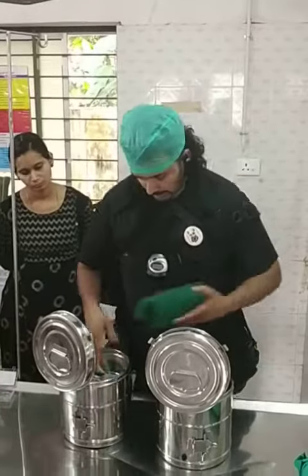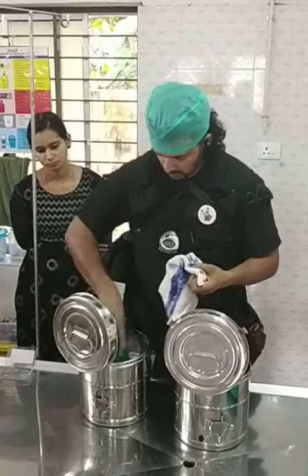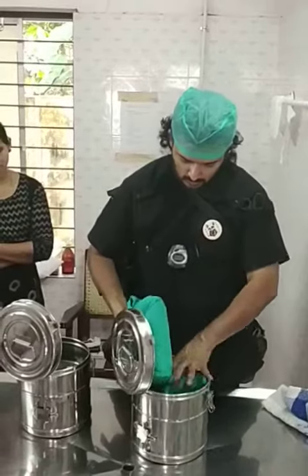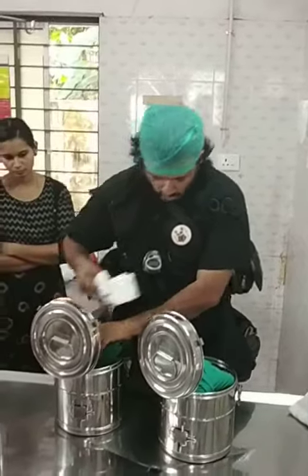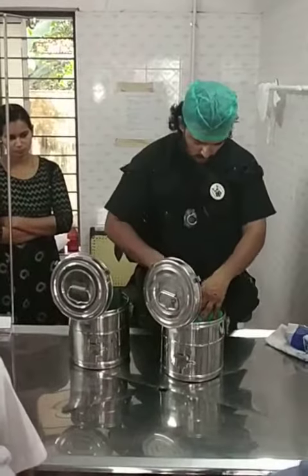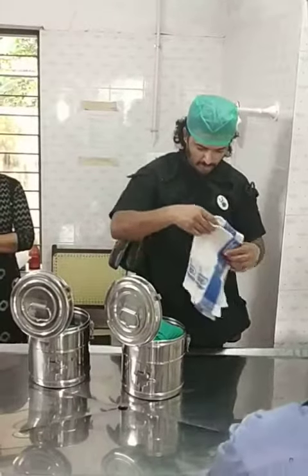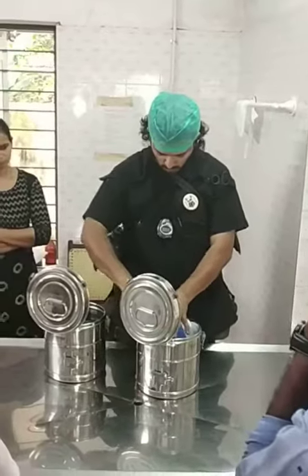I can use these as my swab — these are my main sets. One, two — you can split this extra. You want one on top, a little bit nicer if they're the same.